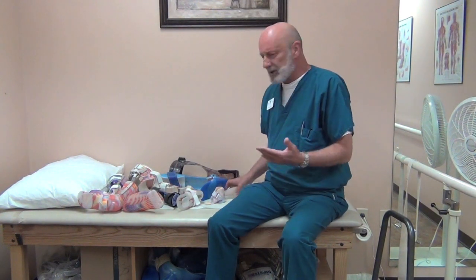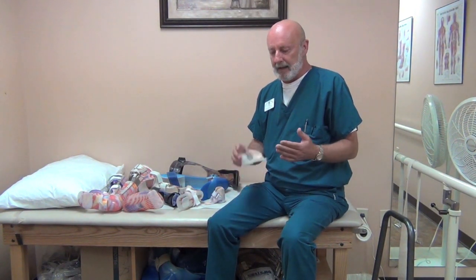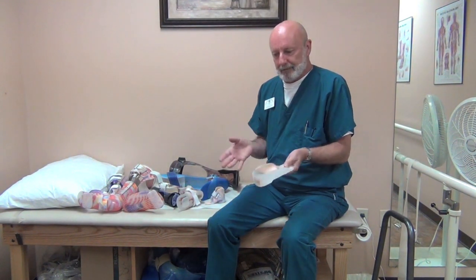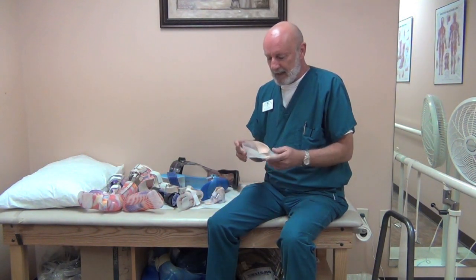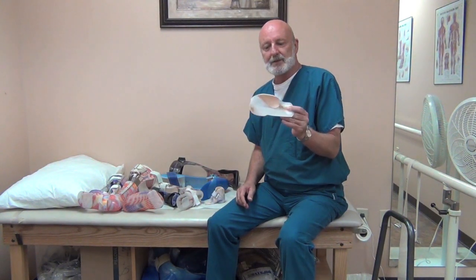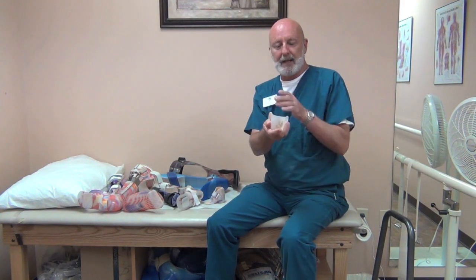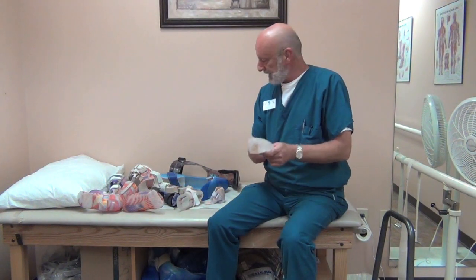Starting with just a minor level of lesion, you have muscles affecting the intrinsic or small muscles of the foot — maybe just pronation, flat footedness, or mild instability at the ankle. You can do something like a UCB, which is just a foot orthotic trimmed below the ankles to give side-to-side stability, support the arch, and protect the integrity of the foot with minimal intervention.